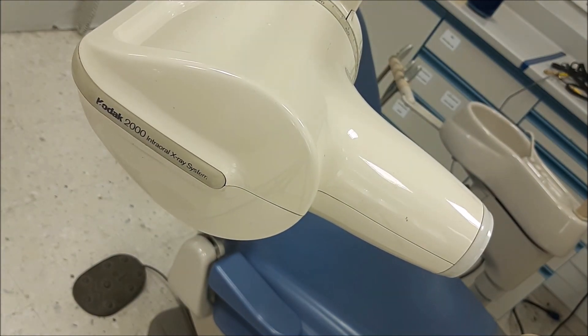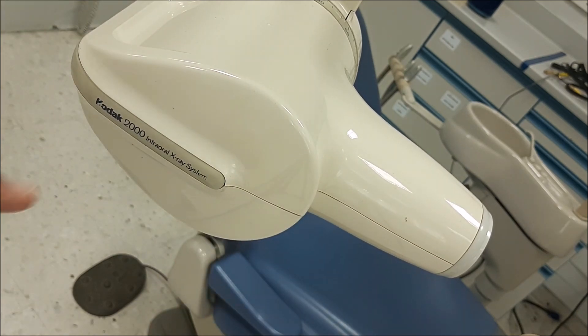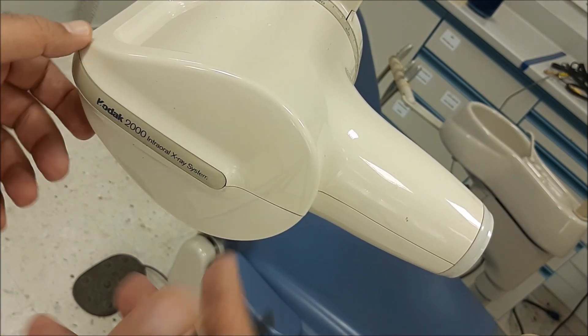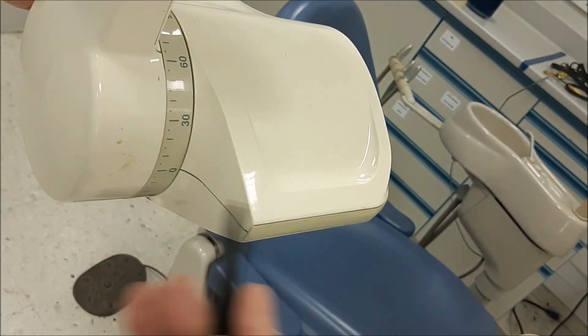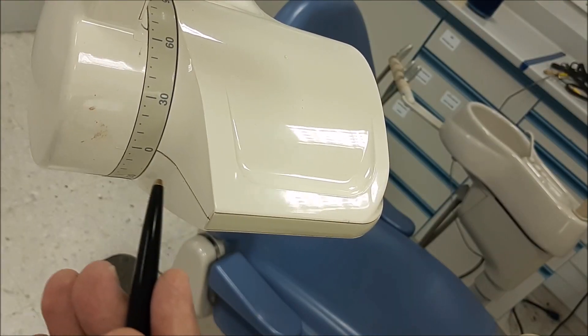If I open this, oil will just spill down. One of the very important things is that if you see any spillage of oil in the x-ray head, not the tube but the x-ray head, do not use this machine.